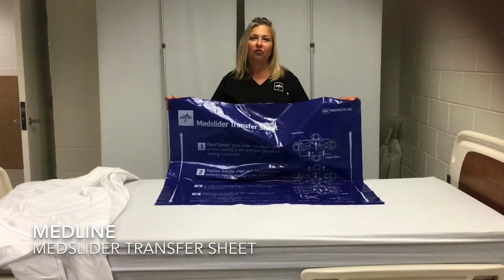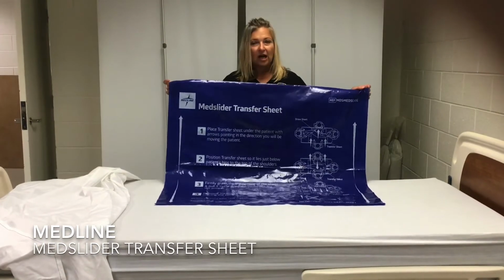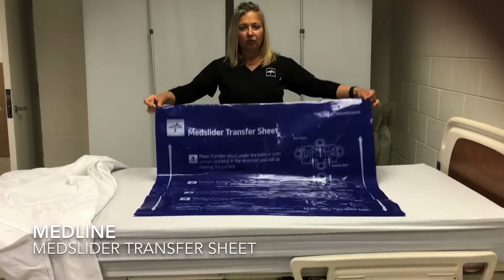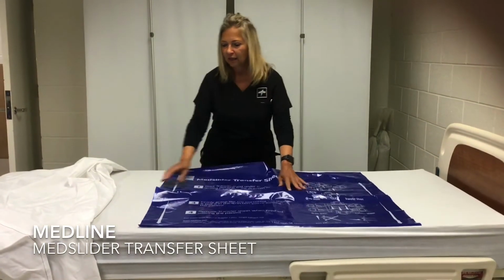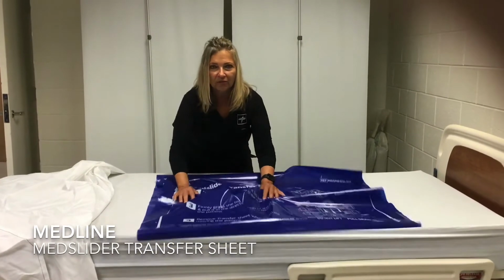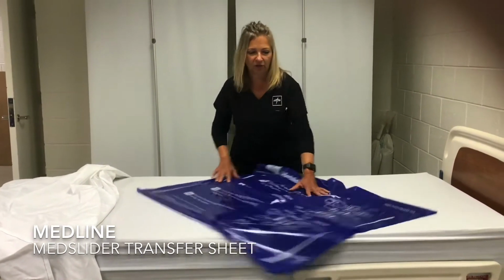We're going to show you some tips and some guidelines on how to properly use our friction reducing slider sheet. It's called a tube slide, reason being it has two sides and it slides onto itself to make it easier to transfer or reposition a patient.